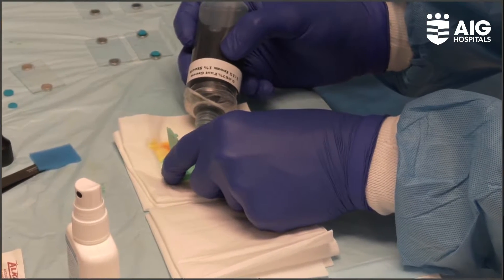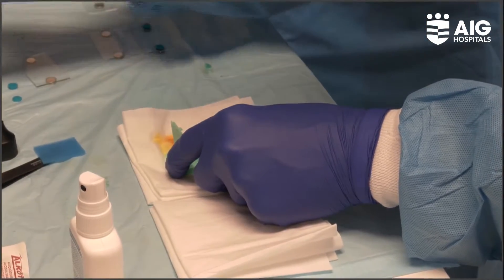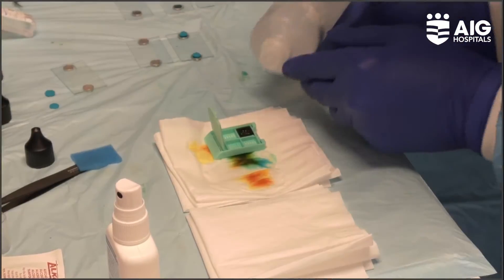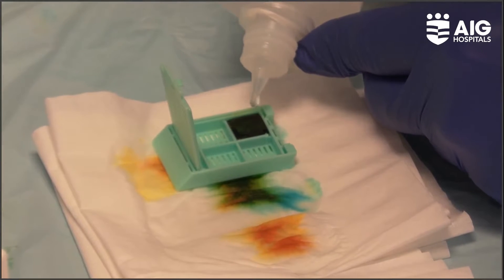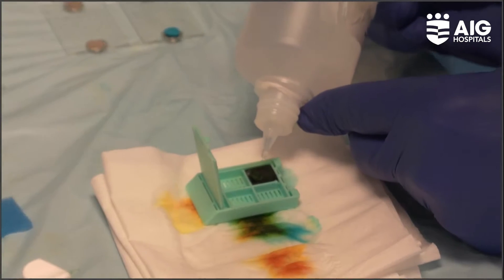We call this microhistology — it's between cytology and histology because you have microstructure of the tissue preserved in the matrix. You will get an H&E-like image in two to three minutes. And later on, you can do immunohistochemistry, PAS, or whatever staining you want. Molecular analysis — PCR, next-generation sequencing — is also possible.